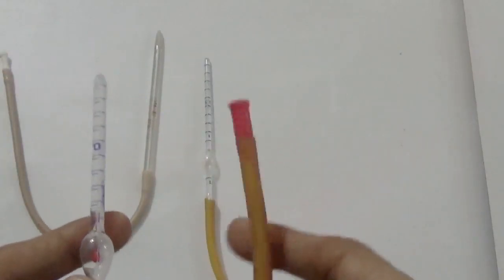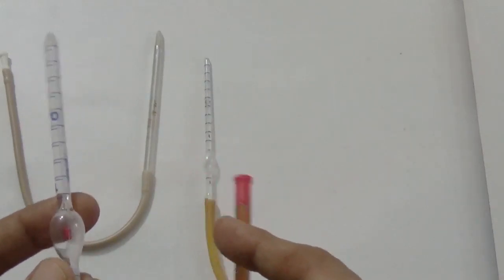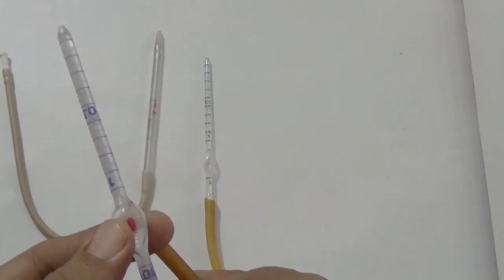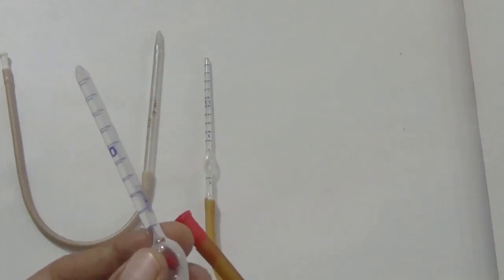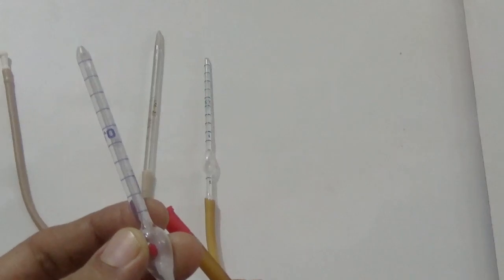Now, what is the principle underlying the use of a diluting pipette? It is important to understand that the numbers marked on the pipette, as we have discussed, are 0.5, 1, 101 in the RBC pipette and 0.5, 1 and 11 in the WBC pipette. These numbers do not indicate any absolute or definite amount or volume, for example in cubic millimeter or microliter. They have no unit, which is the most common mistake made by students. These figures only indicate relative values in relation to each other.